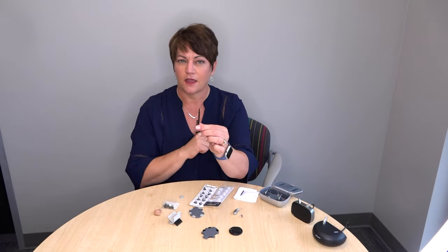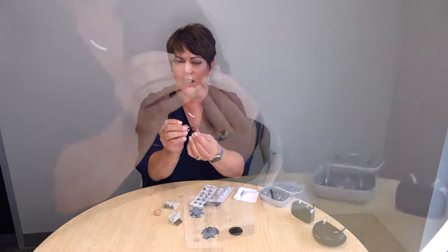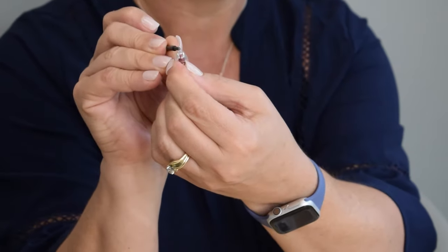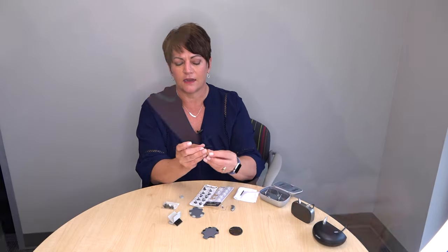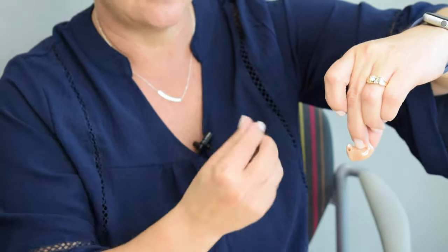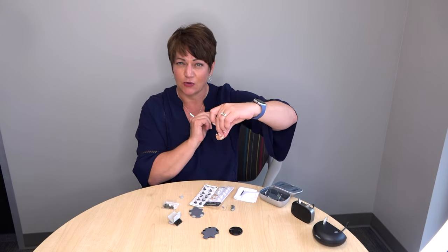Let's talk about the pick. On the pick side you can do two things. If you're wearing a receiver-in-the-ear style, there's a little hood where you can stick the pick through to see if there's any wax inside. On an in-the-ear hearing aid, there is typically a vent drilled through the bottom — that's another place where you can scoop wax out. A scooping motion is best when using the pick with an in-the-ear hearing aid.